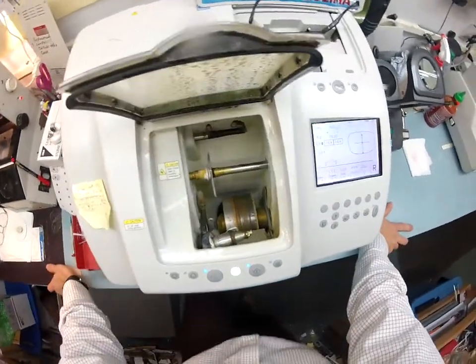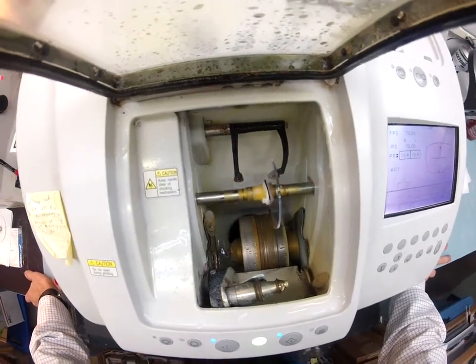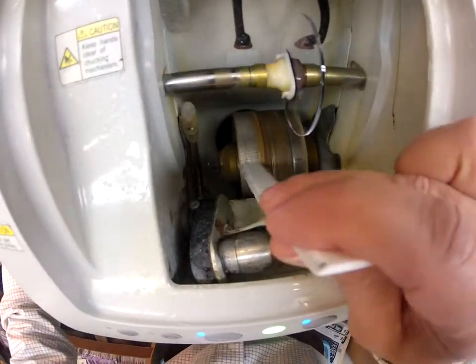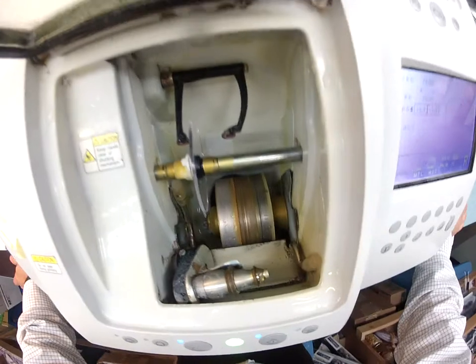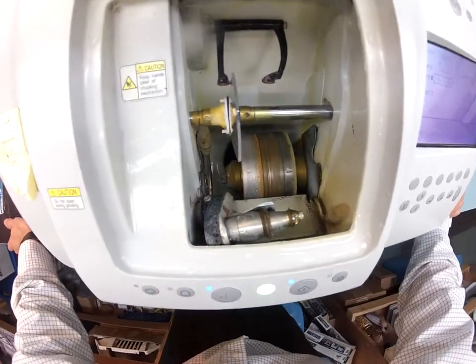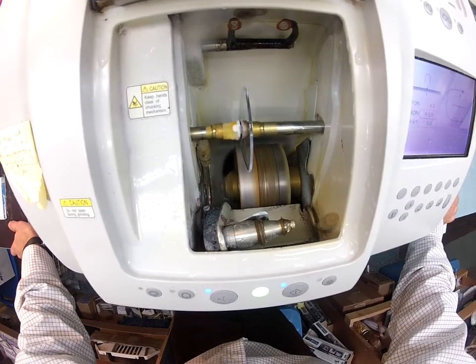The whole process normally takes 10 to 12 minutes with an anti-glare coating, more like 12 to 15. It's going to trace the shape of your frame onto the lens to make sure it's large enough to cut out. There are three cutting wheels down below. The rough one on the left is the heavy-grit sandpaper that will remove most of the lens. The one in the center with the little channel will actually put the bevel on the lens so it stays inside the bevel of the frame. It will get loud as it cuts, so I'm going to close the door and continue talking.